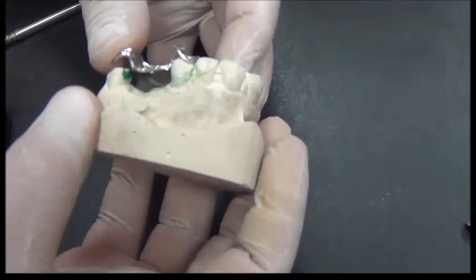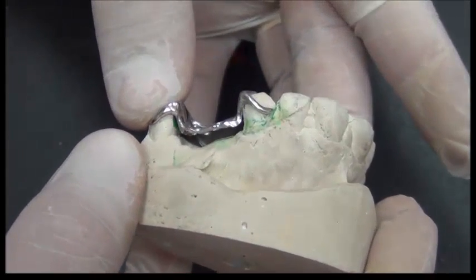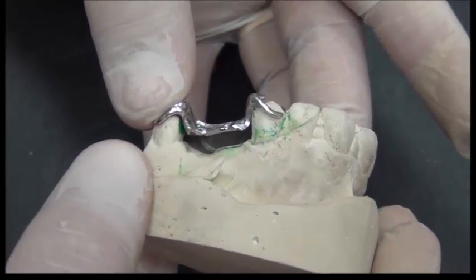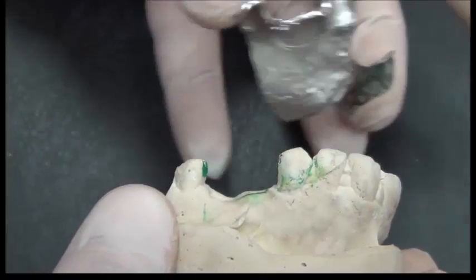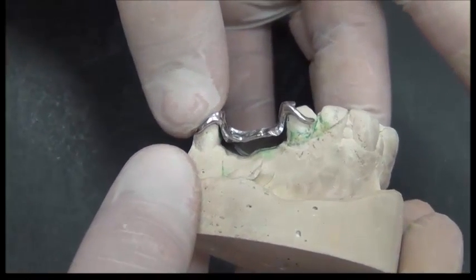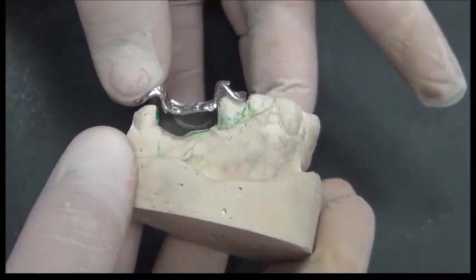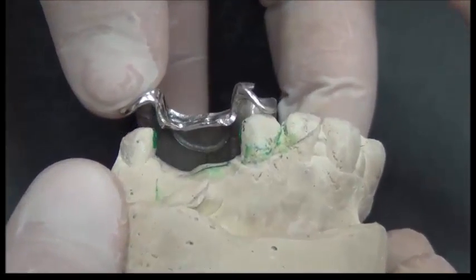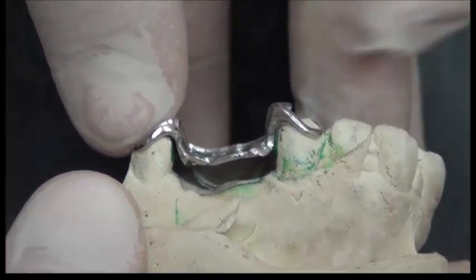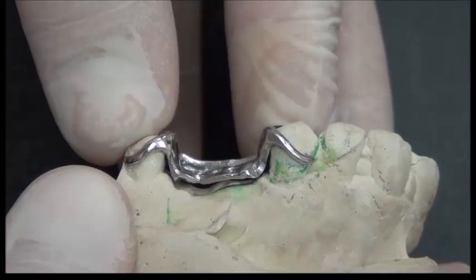If this soft tissue is traumatized by the rigid metal components, we will lose the gingival health and we will have problems. Now we'll talk about the path of insertion in and out for the removable partial denture. It's called the removable partial denture because simply the patient has the ability to take it out, clean it, sleep without it, and then put it back once he wants to function using it. This insertion and removal is better to be in a single path, going in one direction. This makes the RPD more biocompatible to the tissue.